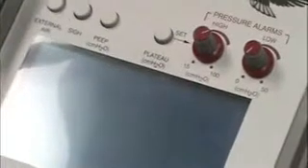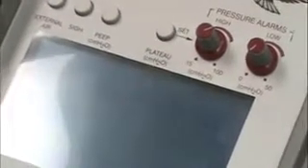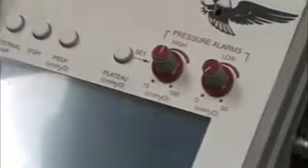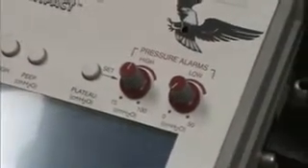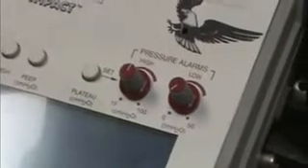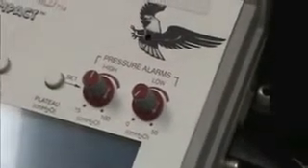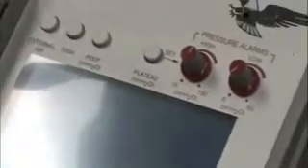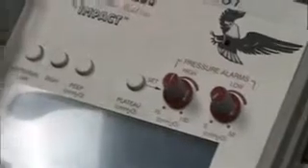So this acts as a safety feature to make sure the patient doesn't pop off the ventilator without you knowing about it. For the high pressure alarm, if we're worried about having to give the patient a lot of pressure without putting them at risk for pneumothorax, we can set a threshold for an alarm to go off, so we can know if we might need to suction, or we can know if we're having to give the patient more and more pressure. If the pressure keeps building, chances are they're developing a pneumothorax. We need to monitor for that. So we want to give only enough volume to satisfy our oxygenation and ventilation requirement, and we assess that through monitoring. We'll talk about how we monitor that in a minute.